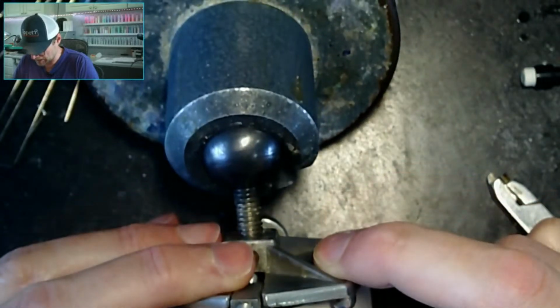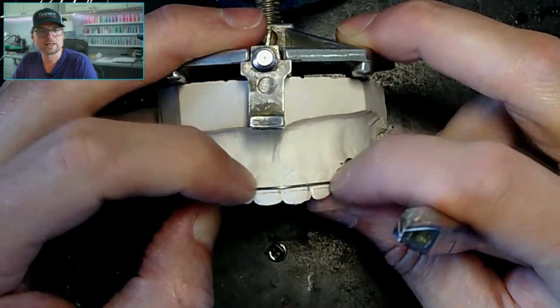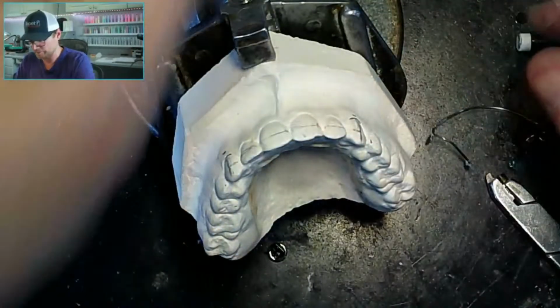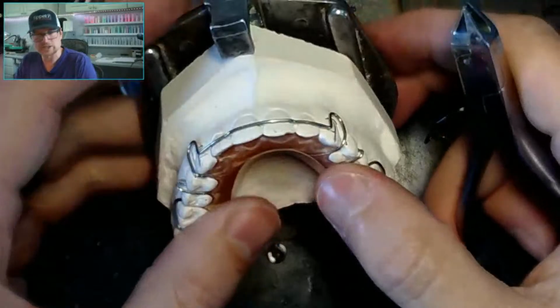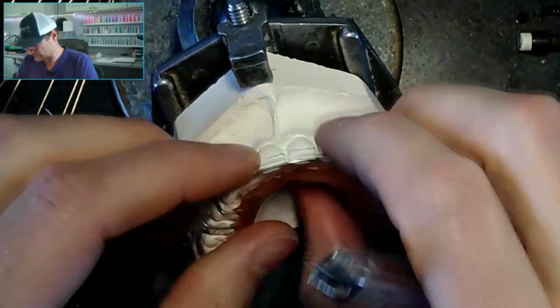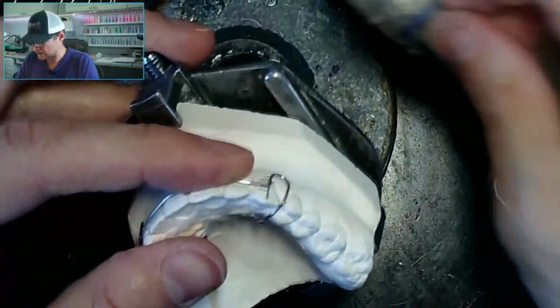I wonder if I drew my line a little low. I think I did. Can y'all see that? I like this placement, not that. But I noticed on my practice one I did back 20 years ago, my labial bow is a little low. So I think I might have got some points off for that. So let me wax this down.